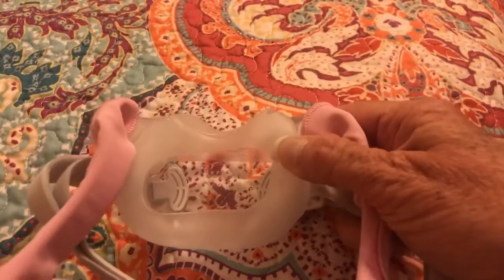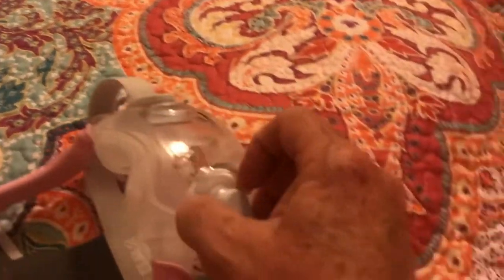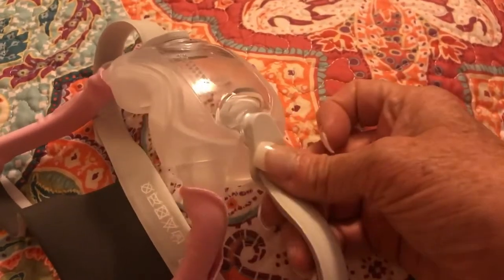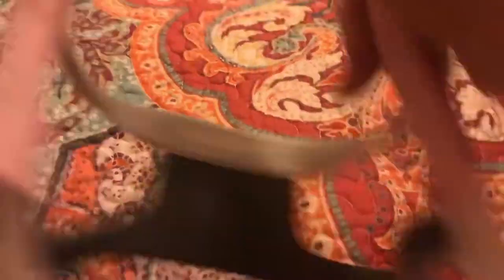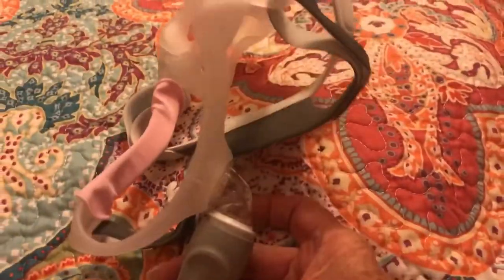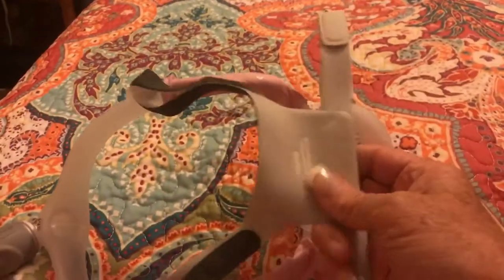You can see it just barely comes up — this is where my nose goes, and this part goes over my face. It's got magnets right here so it unsnaps and snaps pretty easily on both sides. And then my hose hooks right into here. It looks like a pretty comfy strap.